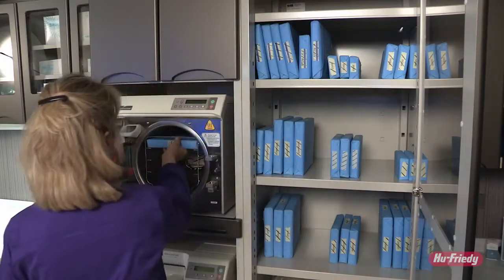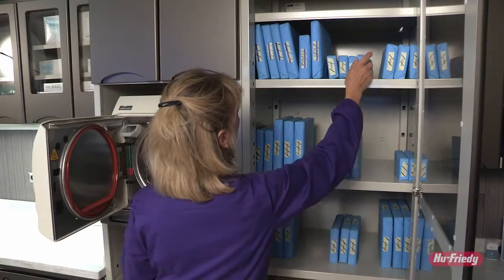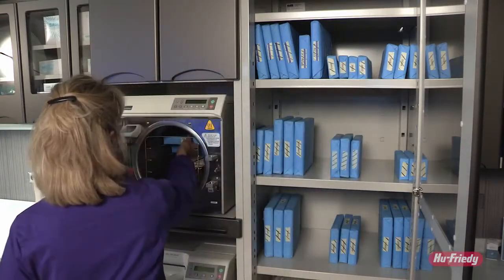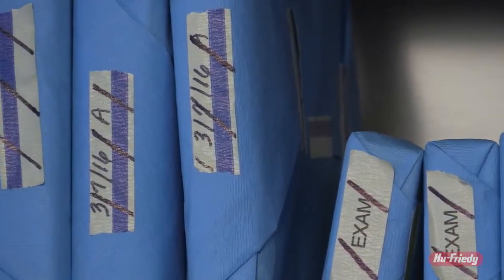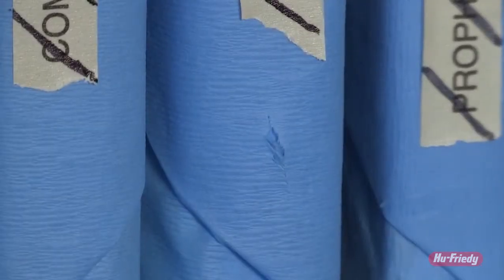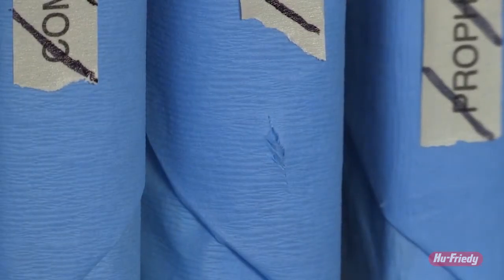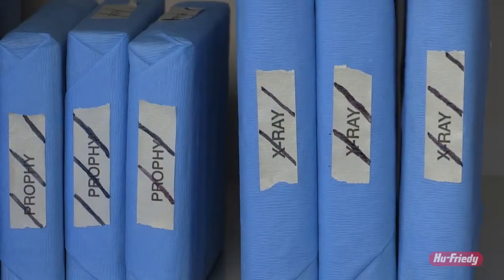No PPE is required when placing sterile items into storage. Hands should be clean and dry. Sterile storage can be date or event-related. Event-related means that as long as the package has not been compromised in any way, such as tears, holes, or penetrated moisture, it will remain sterile indefinitely.